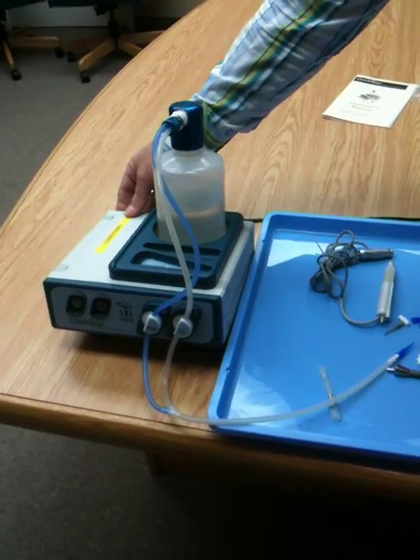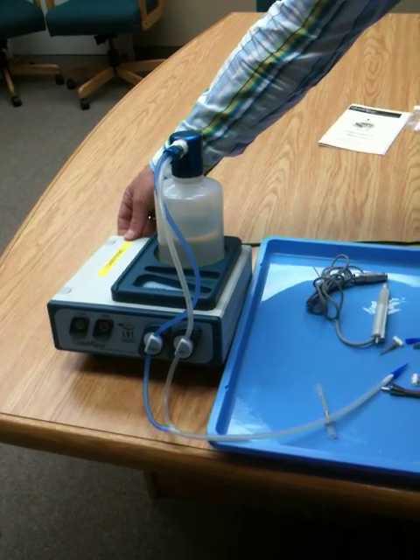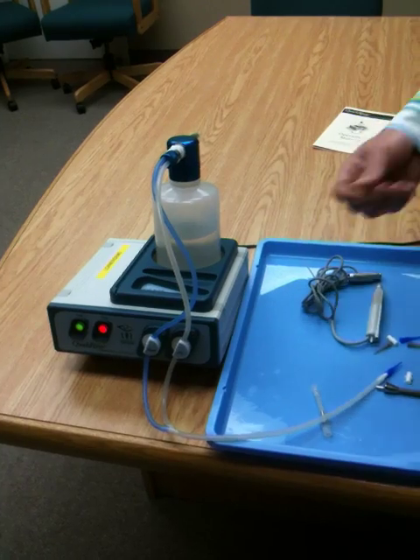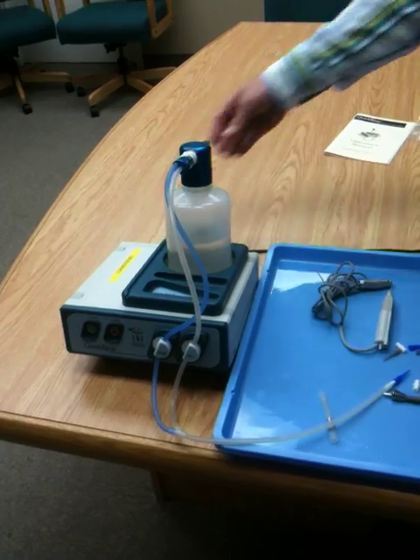One of the other things you must do is turn the unit off at the back power switch between uses. Otherwise, if there are any air leaks and you're leaving the unit on for an extended period of time, the motor will continue to pressurize and you may run the risk of burning out the motor. So always turn it off in between uses.